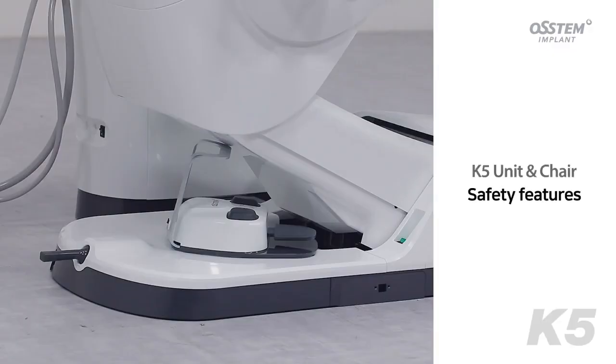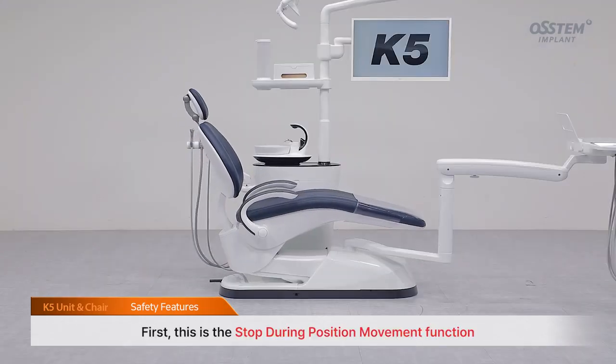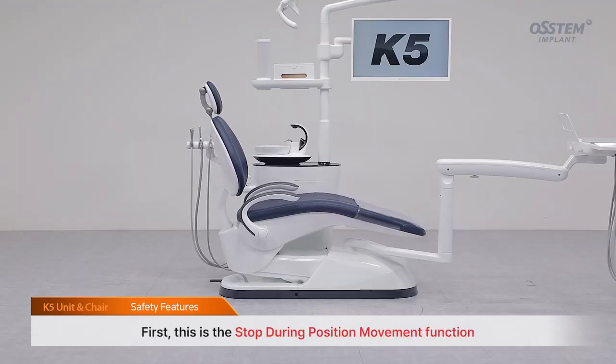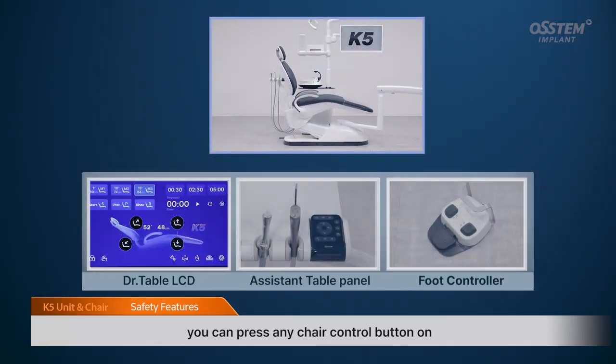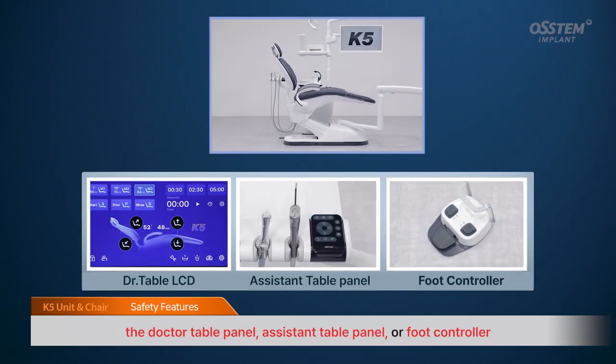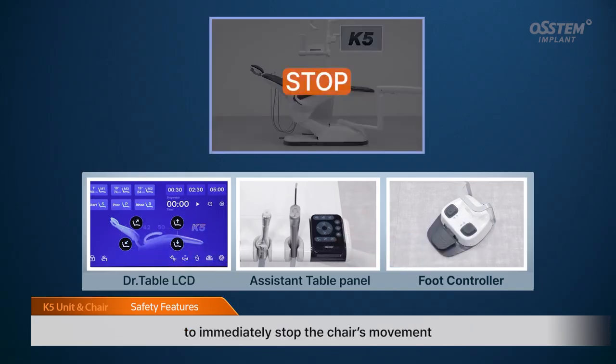Safety features. The K5 is equipped with safety features designed to protect the patient, medical staff, and the system. First, this is the stop during position movement function. If you want to stop the chair while its position is changing, you can press any chair control button on the doctor table panel, assistant table panel, or foot controller to immediately stop the chair's movement.